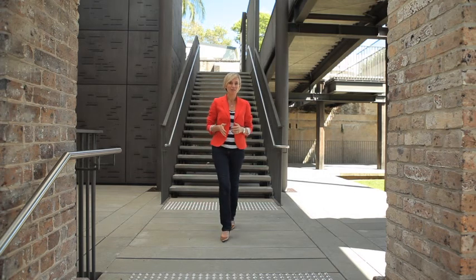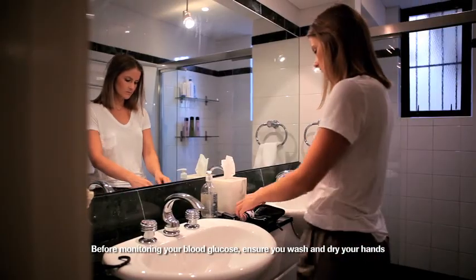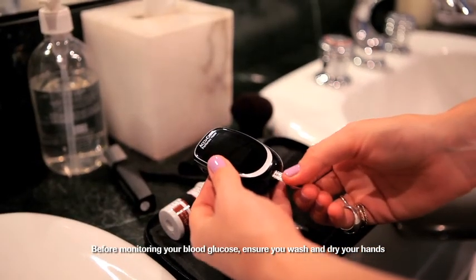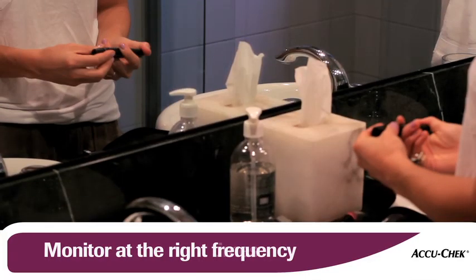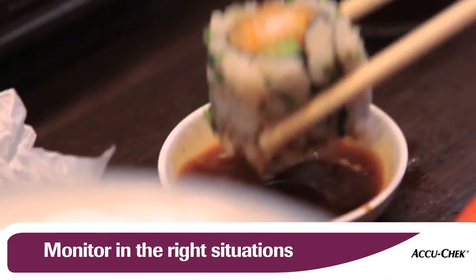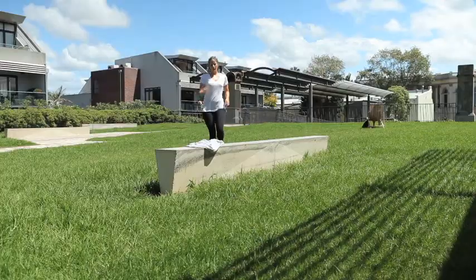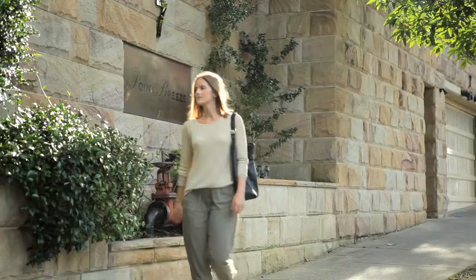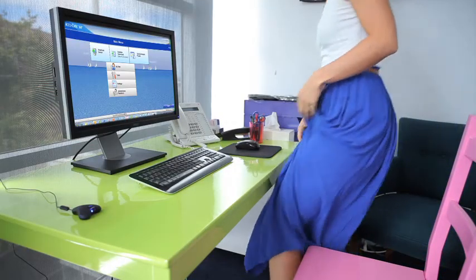The AcuCheck 360 Diabetes Management System is a comprehensive tool that helps you better manage your diabetes on a day-to-day basis. To get the most out of this system, it's important to first understand the value of monitoring your blood glucose in a structured way. Monitoring your blood glucose at the right times, at the right frequency and in the right situations gives you a clearer picture of how food, exercise or medication impact your blood glucose throughout the day. By monitoring in a structured way, you can get the most out of using your AcuCheck blood glucose meter and the AcuCheck 360 Diabetes Management System.